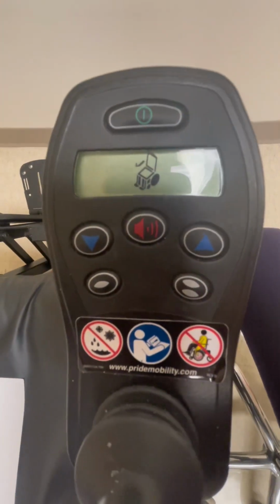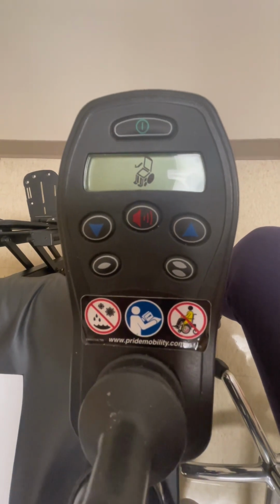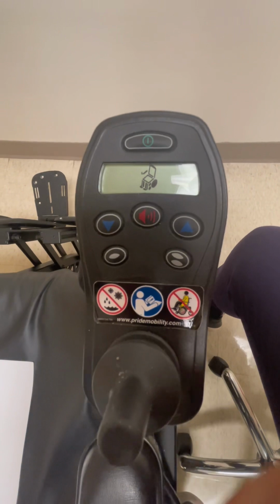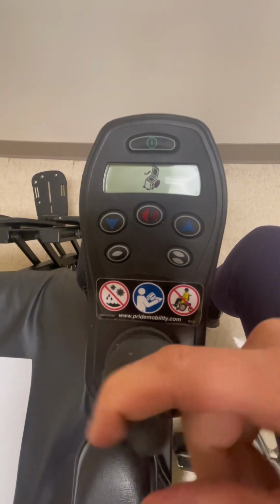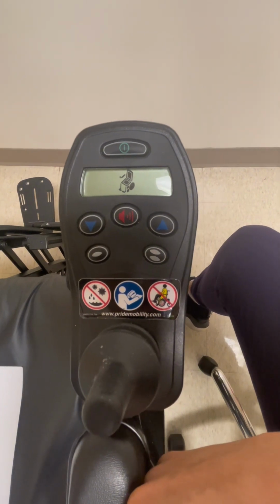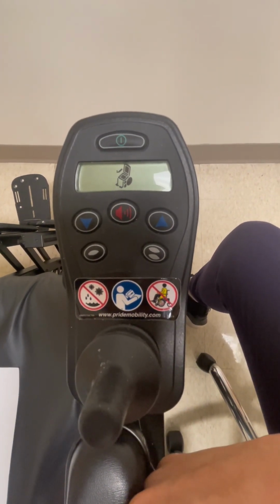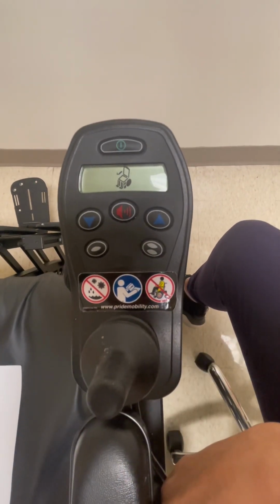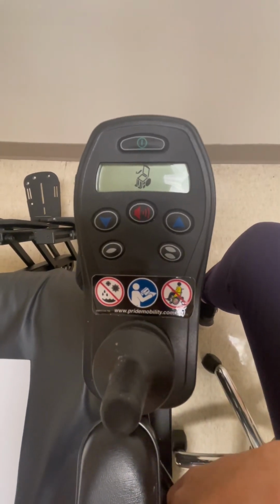To change between different seat modes on this chair, first ensure that you are on seating mode by looking at the screen and is demonstrated by the picture of the wheelchair. Currently, the leg rests are highlighted on this chair, and that's what would be changing. Then, move the joystick to the right and you'll see that the seat back and seat of this wheelchair light up, and now you've moved into tilt mode. Change it again and you go back to leg elevation mode.